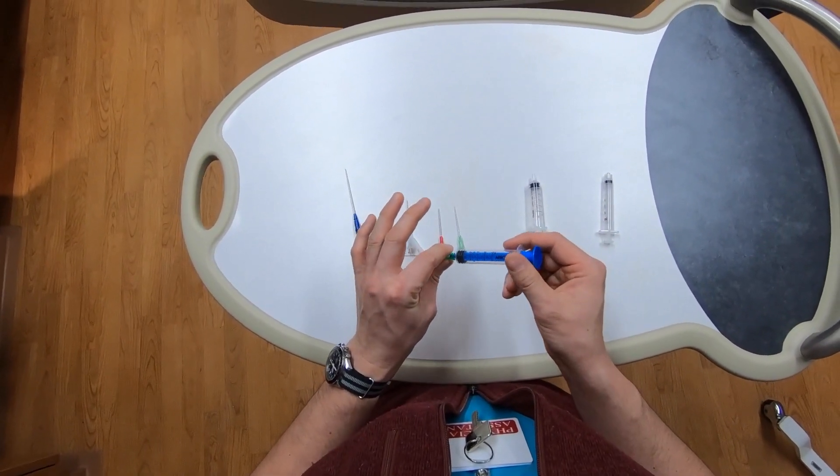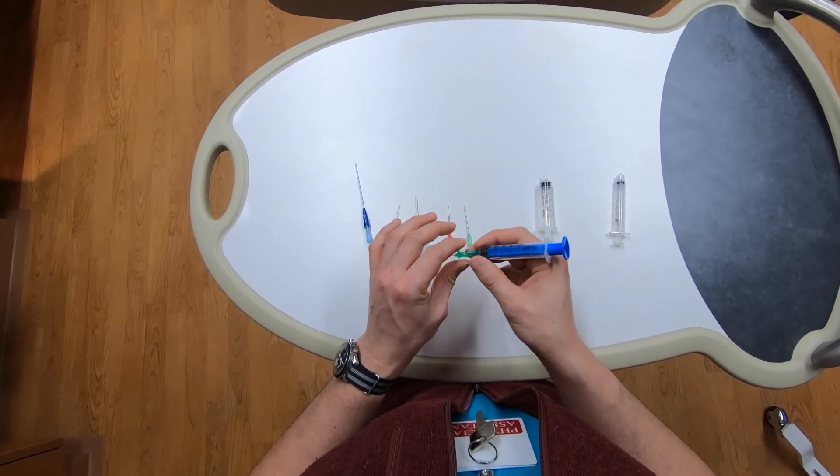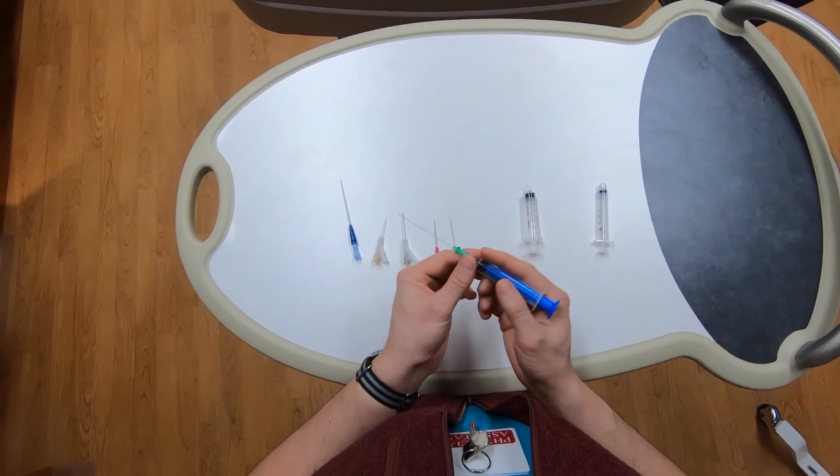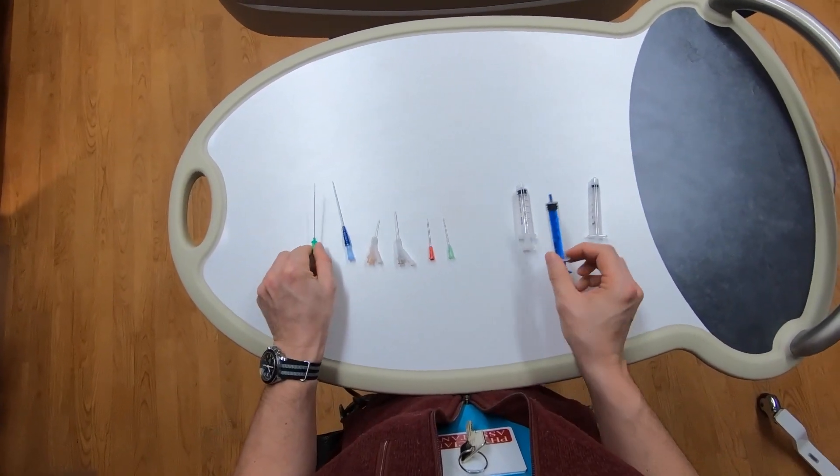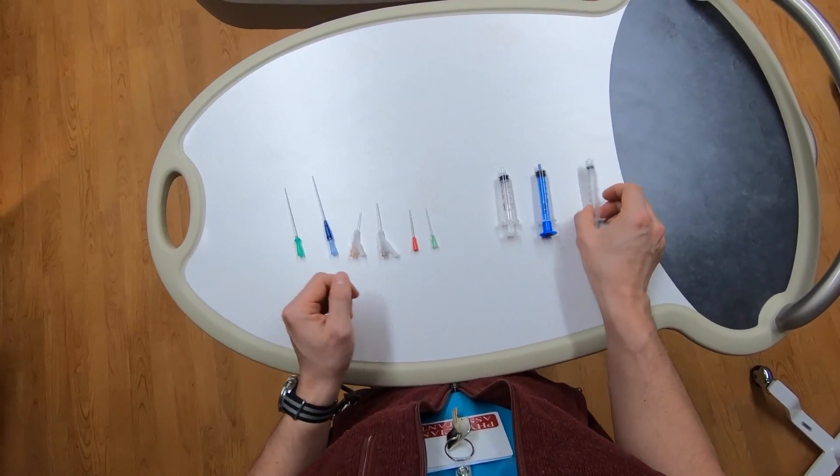And maybe in those patients, it would be valuable to have a technique that allows you to access the vessel and place your wire all without ever opening it to air.